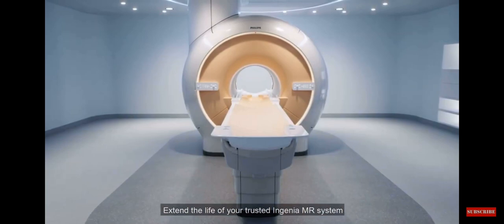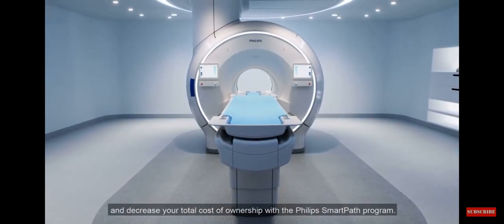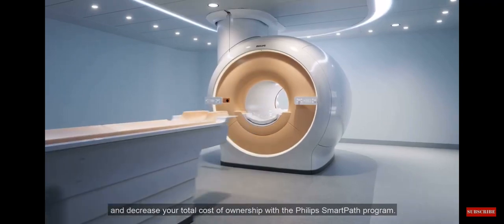Extend the life of your trusted Ingenia MR system and decrease your total cost of ownership with a Philips SmartPath program.